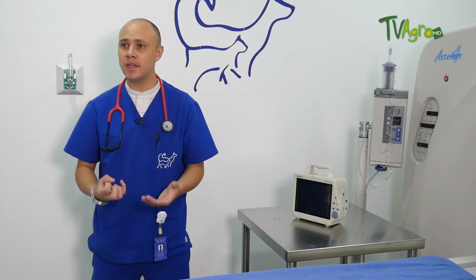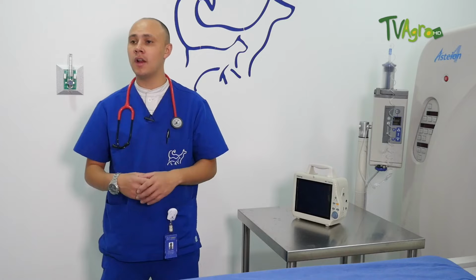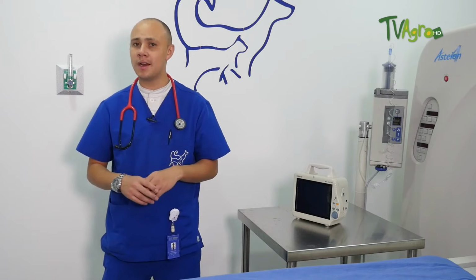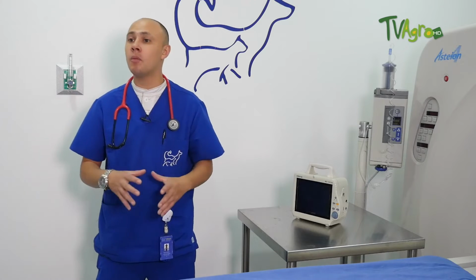Other studies in which we can give very accurate information would be chest studies, when we suspect alterations at the bronchial level, at the pulmonary level, at the cardiac level. There we can determine from simple masses to space-occupying lesions, to bronchi, bronchitis, pneumonia, and so on. We can also be very accurate with that diagnosis.